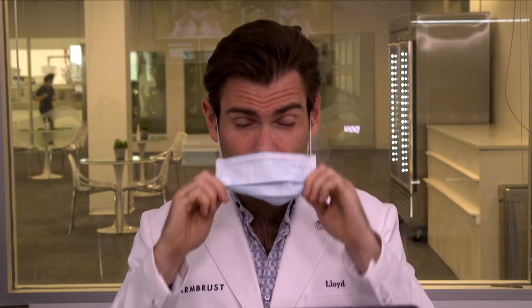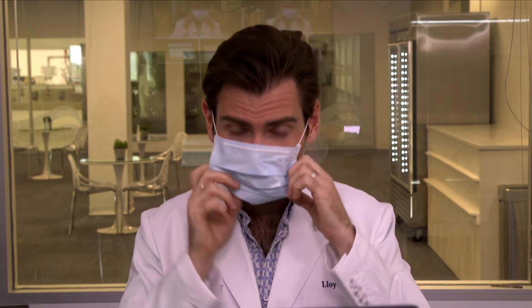Let's try that. I'll go 50/50 on the ear loops. If I give it any tug at all, it's going to come off — that was barely even a tug. But I don't think it's going to come off on your face, so that's good. Nose wire is great.